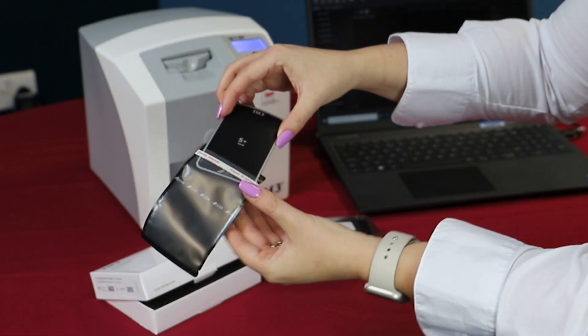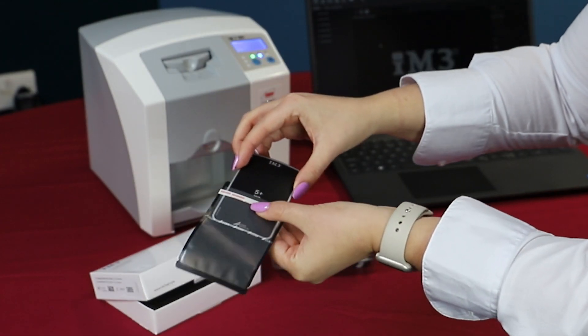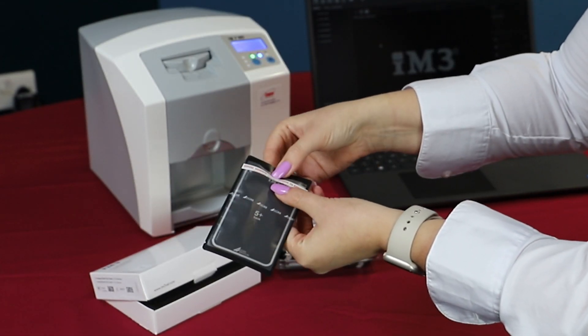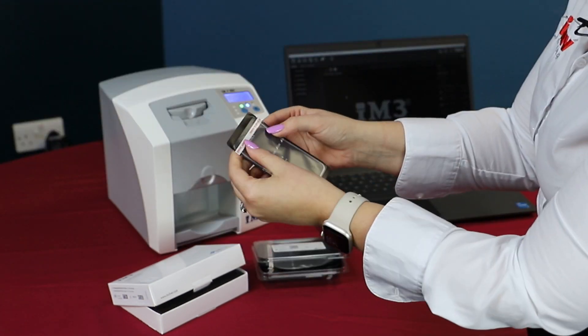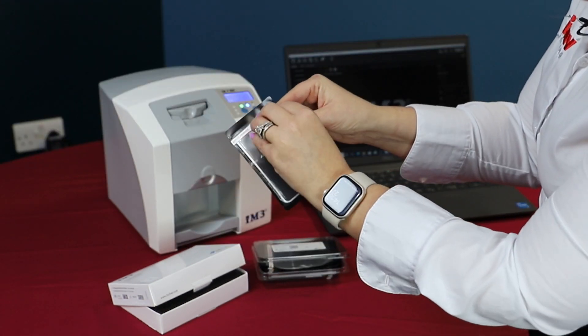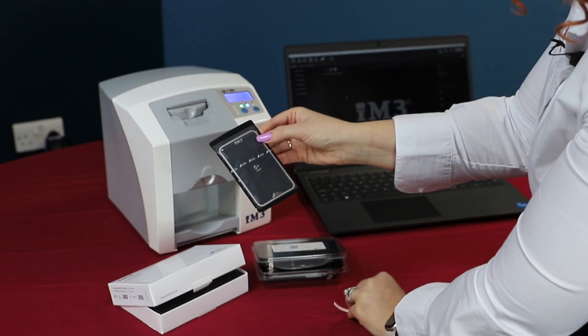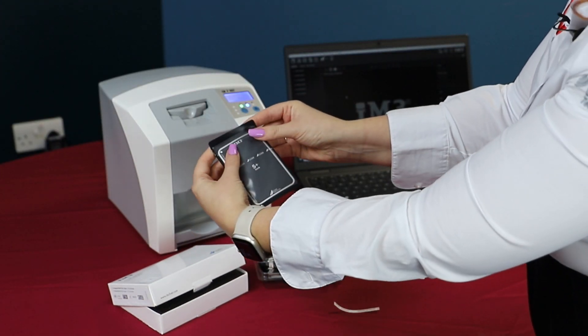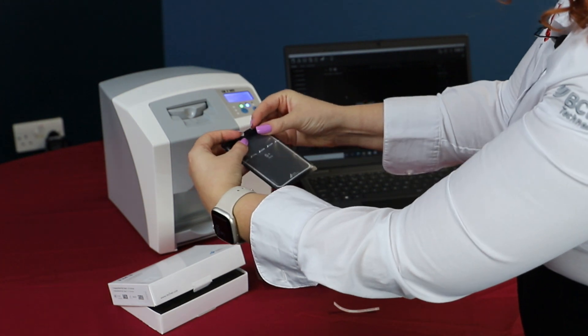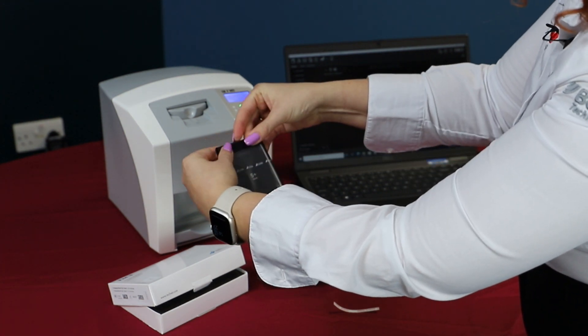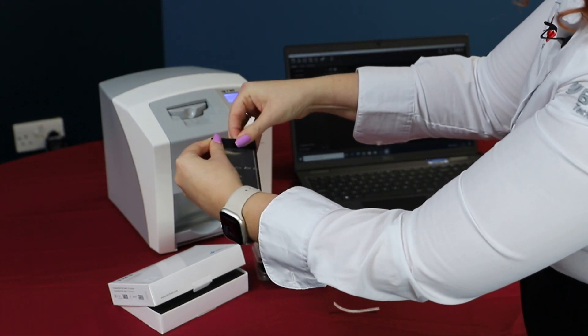Always put the plate in the sheath with the blue side facing towards the black side and numbers visible through the clear side of the sheath. Use a suitable angle guide and place this under the plate in the bite guard.